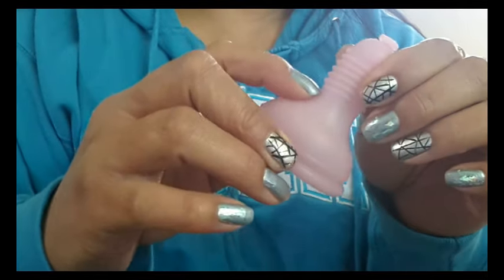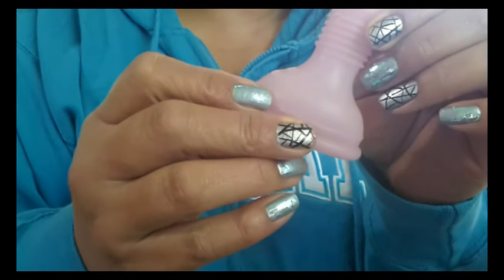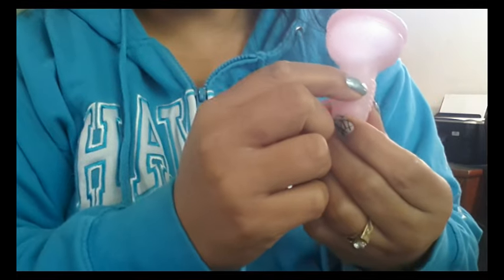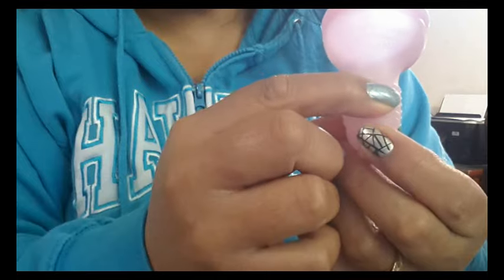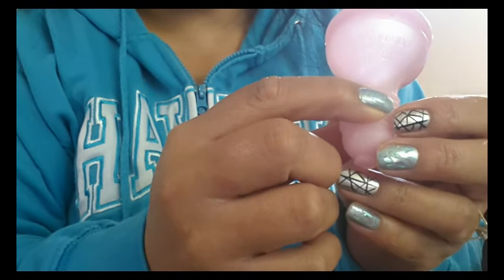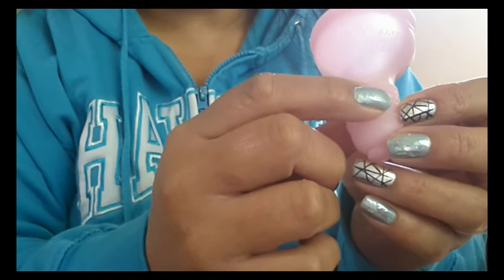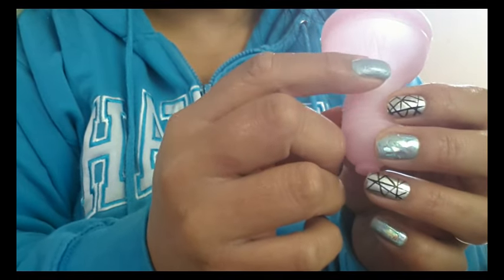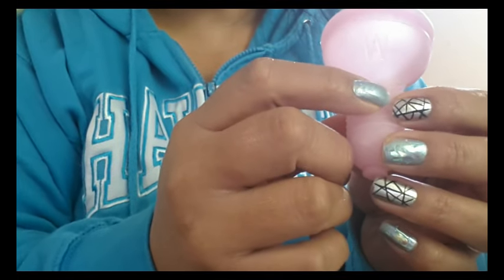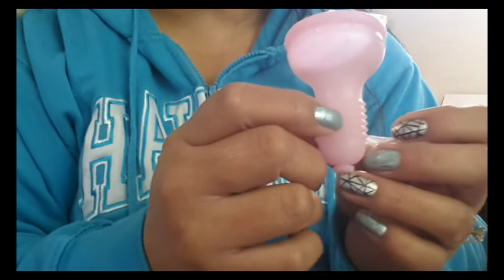After the threads, there is some molding on the outside of the cup. It's going to be upside down just so I can get the light to shine through it and make it visible for you. It does say 'Amy Cup, patent pending' on one side, and then the other side has an M — which looks like a W right now — but the M indicates that it is a size medium.